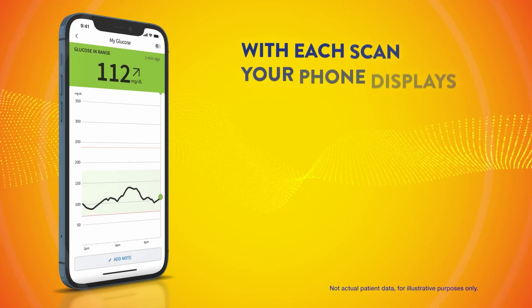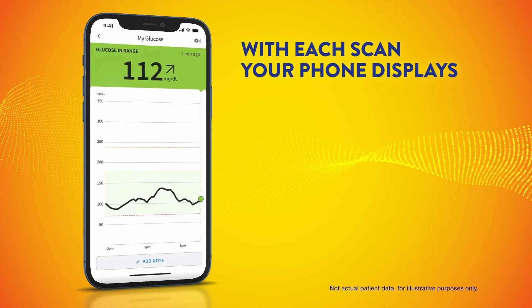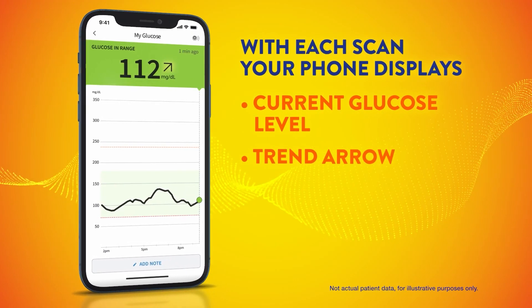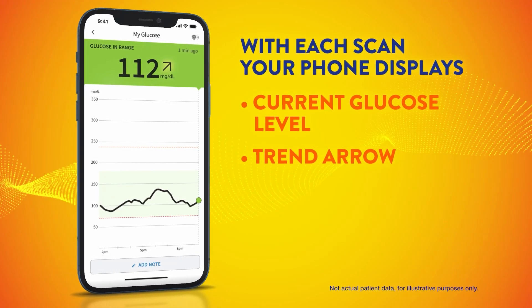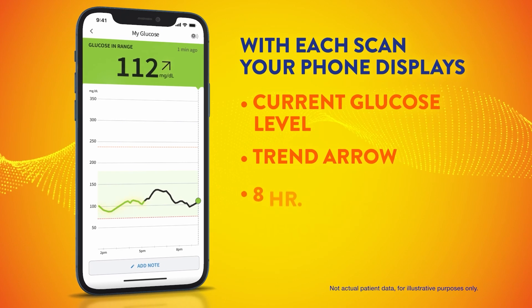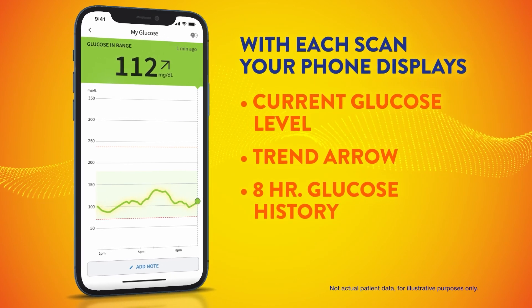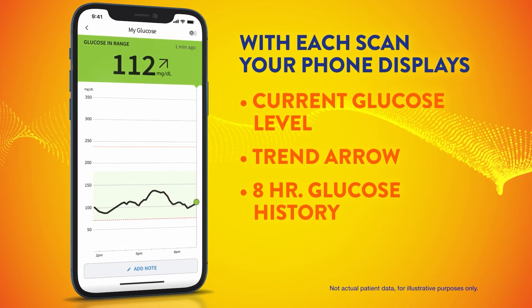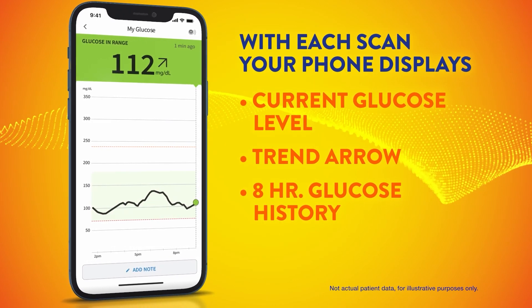Then, the app will instantly display your current glucose level, a trend arrow that indicates how your glucose is changing, and a graph that shows your glucose history for up to eight hours.